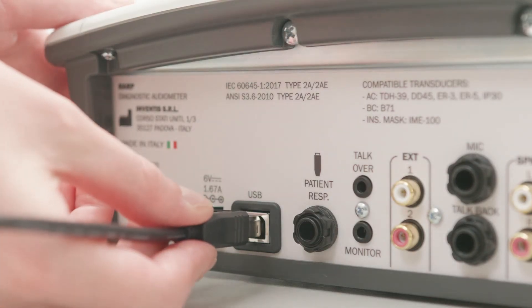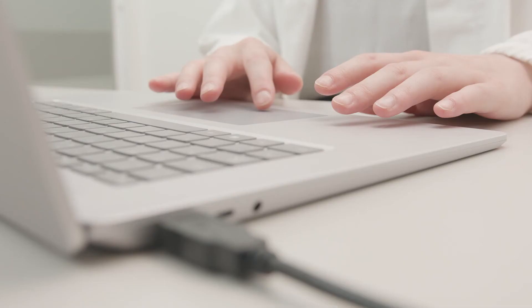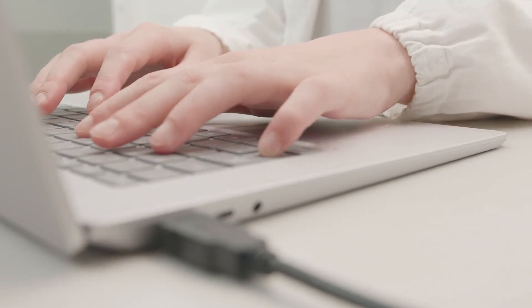HARP audiometers can be interfaced with a computer via a USB connection. The live view function allows viewing the pure tone audiometry carried out on the HARP on the computer screen, and transferring the completed PTA to the Maestro software by simply pressing the two PC button from the HARP keyboard. Maestro must be previously installed on the computer, with or without a proprietary database, or as a NOAH module.